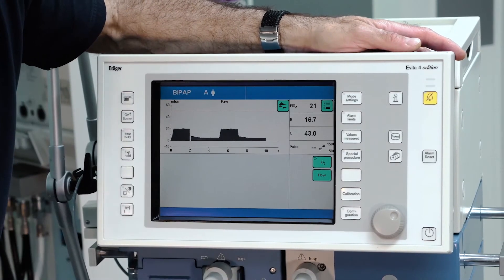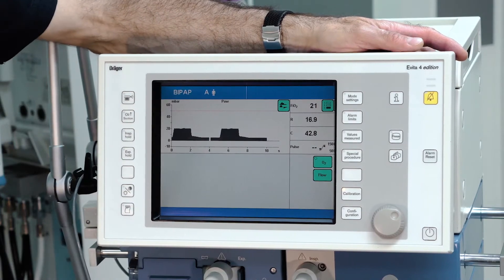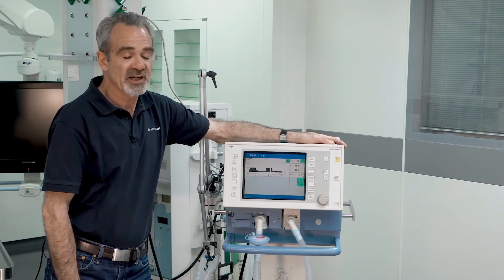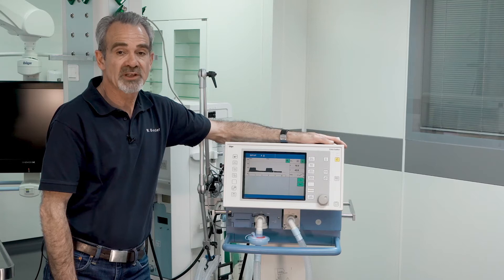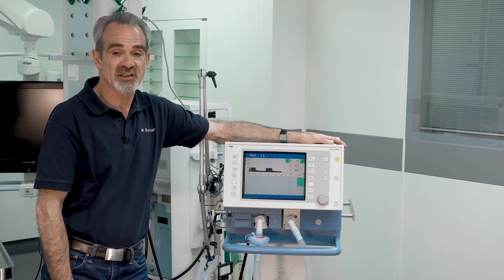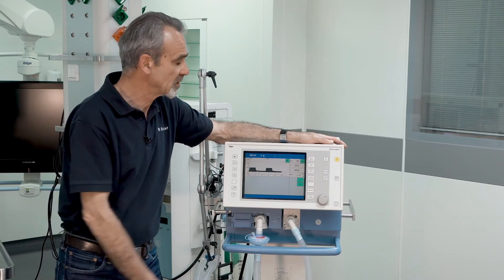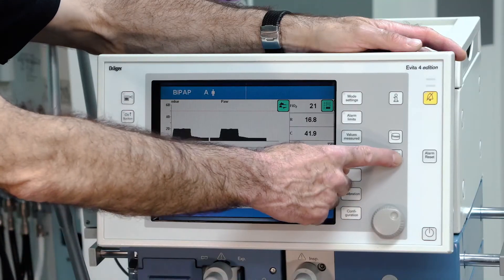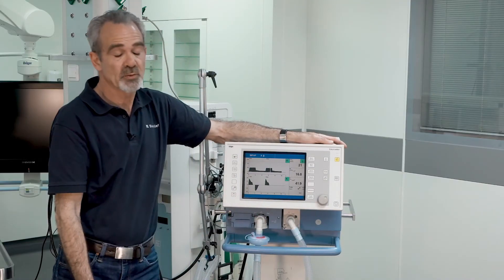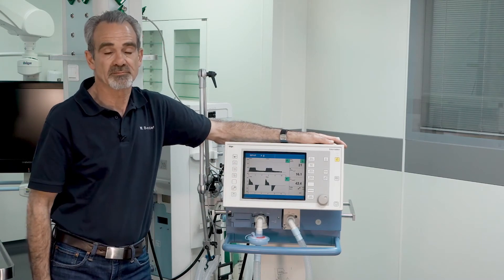If you push the calibration button, you can manually calibrate the O2 sensor as well as the flow sensor. By pressing the main menu button, the device always turns back to the main screen.